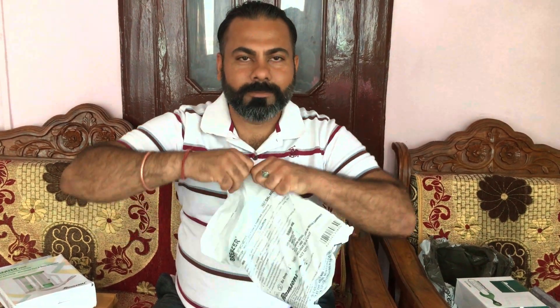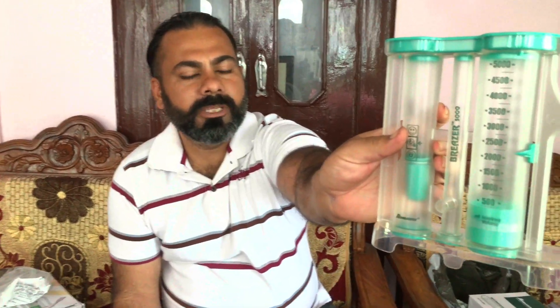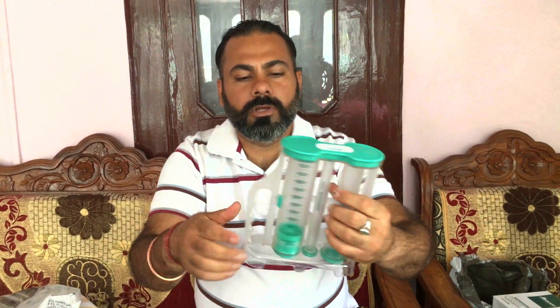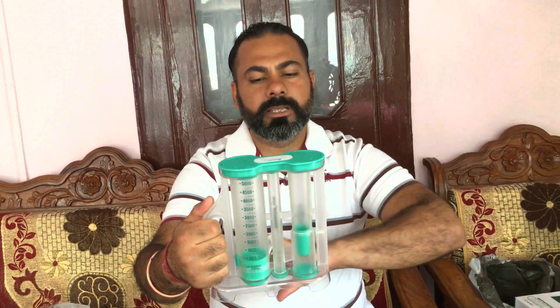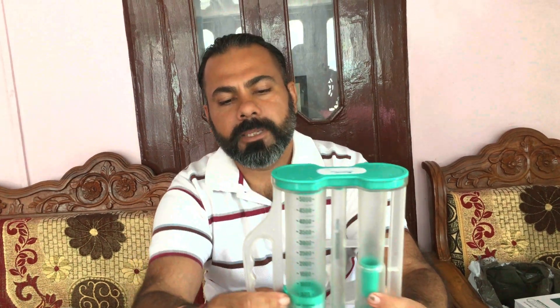This time I am in a remote area, so I don't have much equipment or scissors, but you can see that this is the incentive breather. Spirometer is the same, and respirometer is the same. You can see the volume is 5000cc. You have a mouthpiece and you can fit it here in the center. When you fit it, then you can hold it. You cannot forcefully intake or exhale — you can just inhale. It is also for long and deep breath.